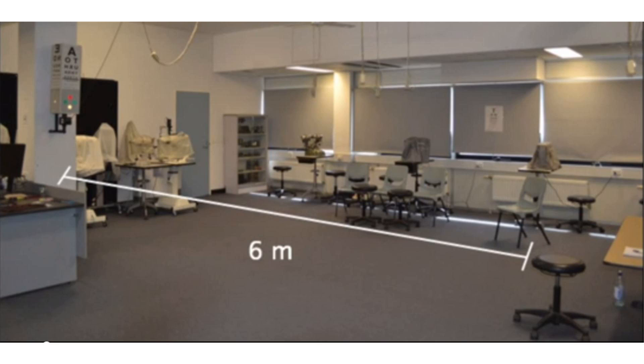The W4LT test is indicated for use when assessing the binocular functions, the ability of eyes to work in coordination, of an individual.